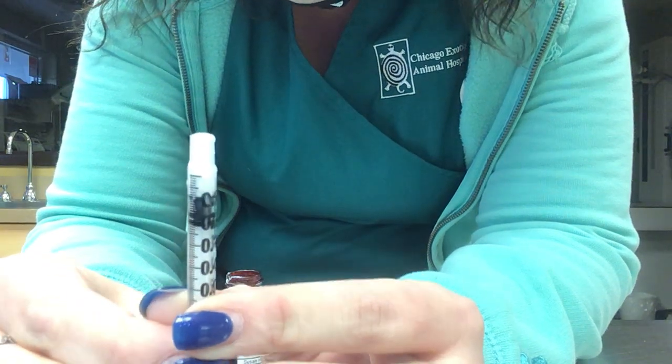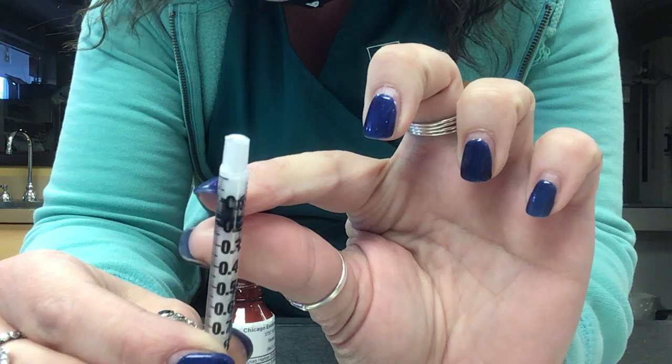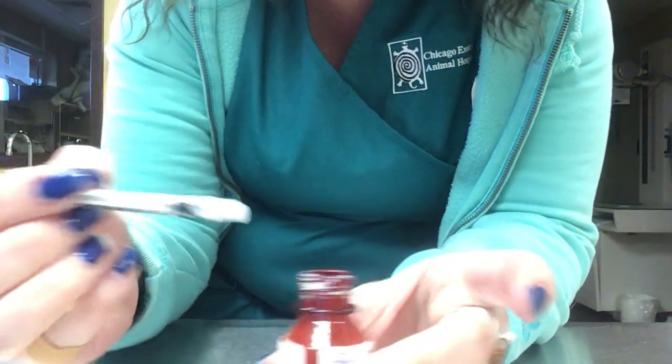You can see there are no air bubbles in this syringe — only medicine. It's filled all the way from where the plunger starts down at the 0.09 mark all the way to the tip.